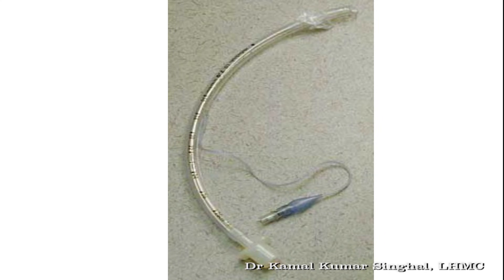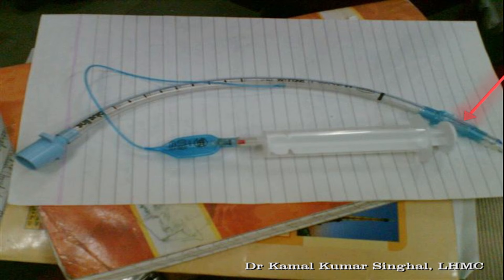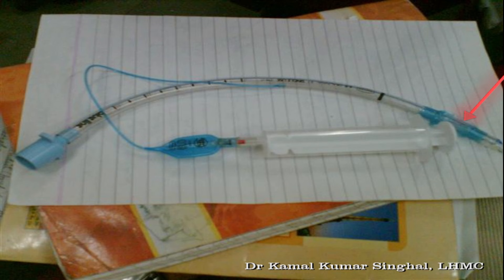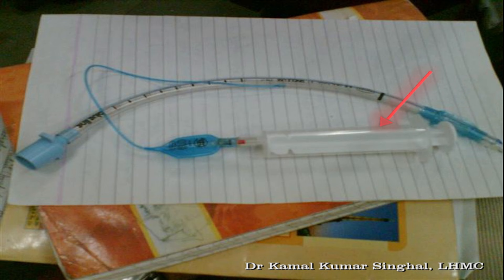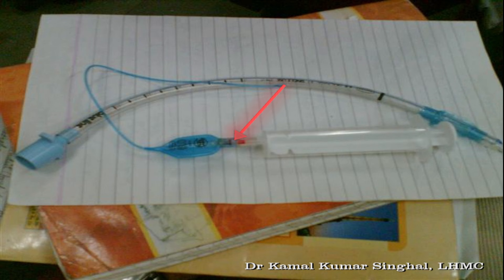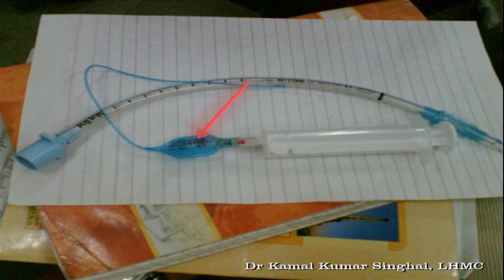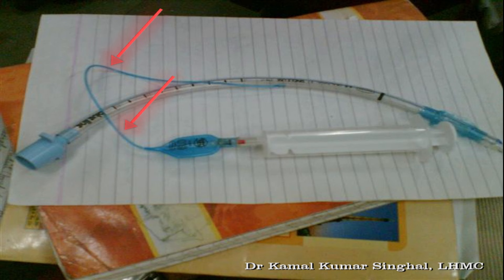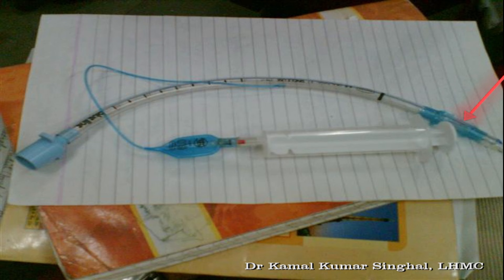These are cuffed endotracheal tubes, and you can see the cuff here. The cuff can be inflated using a syringe, which is connected at a point that has a one-way spring-loaded valve. This is the pilot balloon, and through the inflating tube, pressurized air is pushed into the cuff.